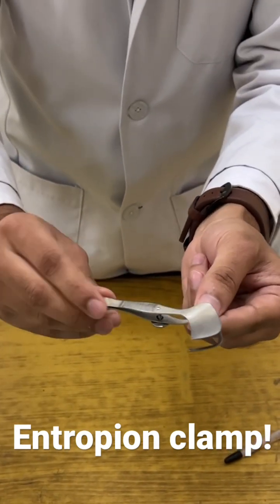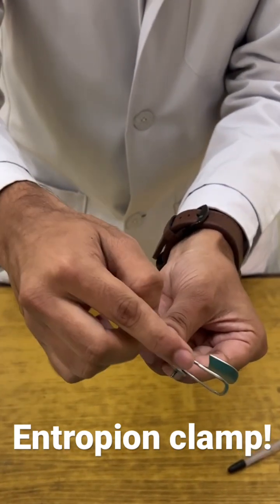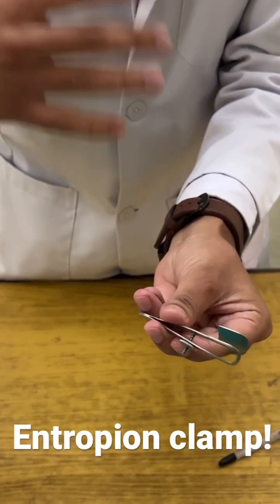It is not universal because it has different uses in different eyes. This margin is very sharp, and because of that reason, it is not used in both eyes.